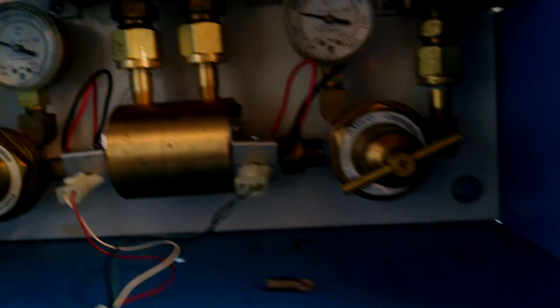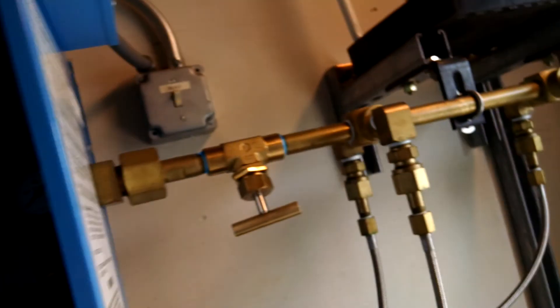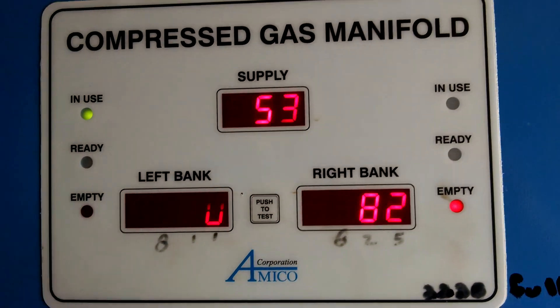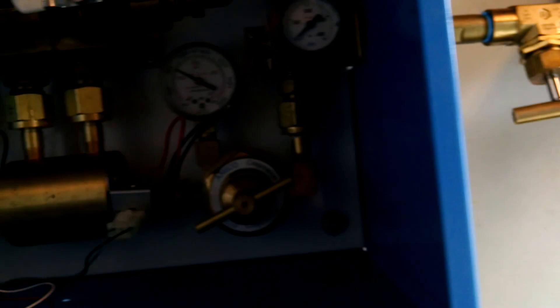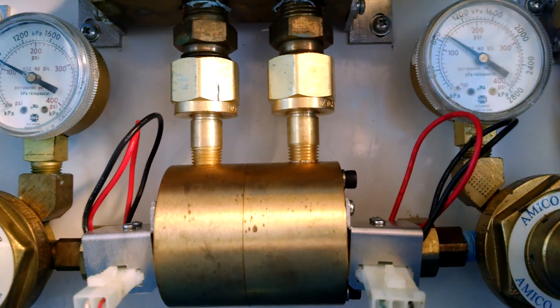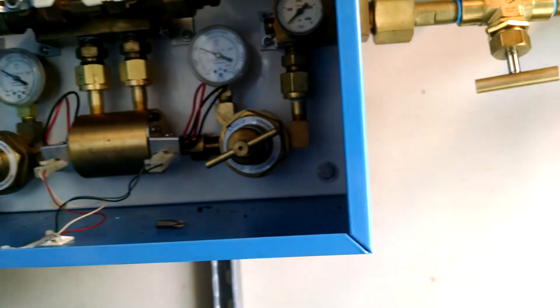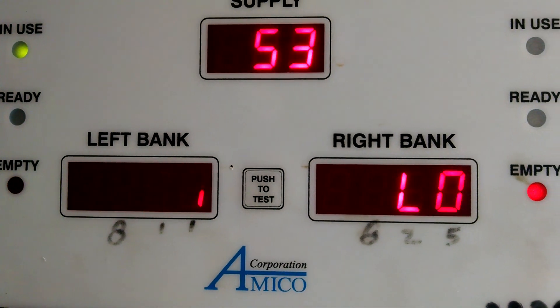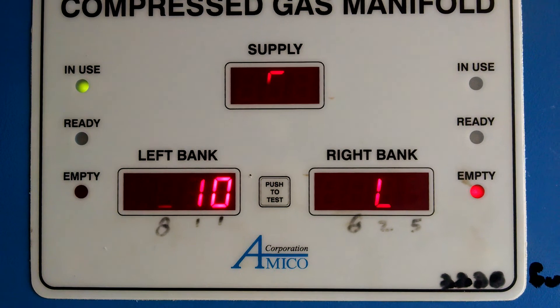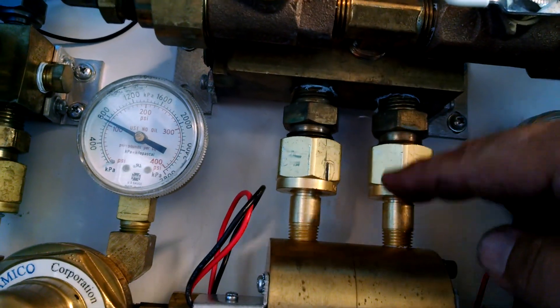Something is still wrong with this because we're getting bad stuff, or we got a lemon, or something else is going on. I really don't want to lean toward Amico selling bad stuff because then we would probably want to switch out the entire regulator, which gets expensive. So you just switch back over. In a real world case, the doctor is using the right bank and depletes it immediately because as soon as you put it back over, it's bleeding more oxygen. So this is what I'm dealing with, and it doesn't seem like there's anything to prevent the oxygen from moving back into the chamber.